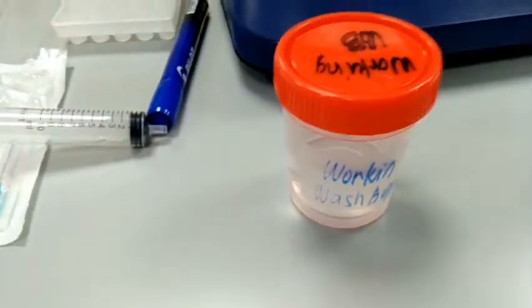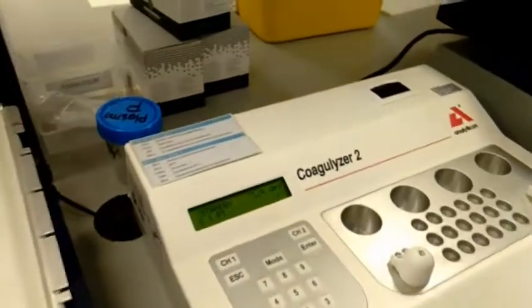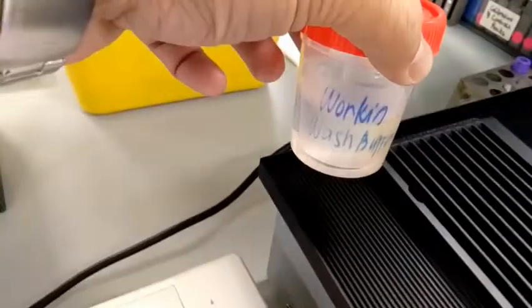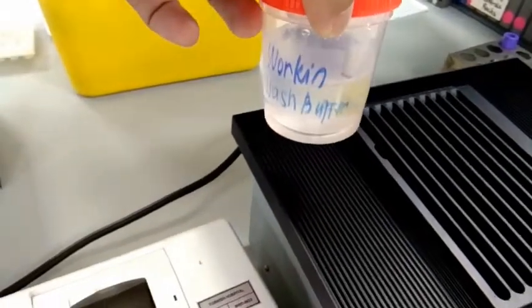It's okay. We need only substrate and the conjugate outside. All of them inside. Inside is 1ml working buffer.